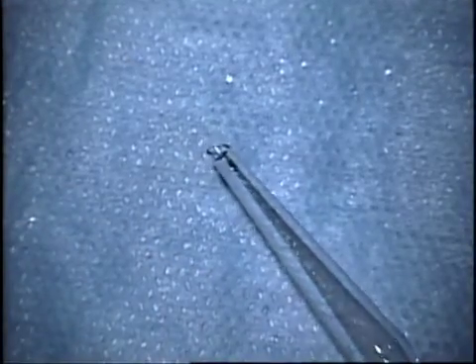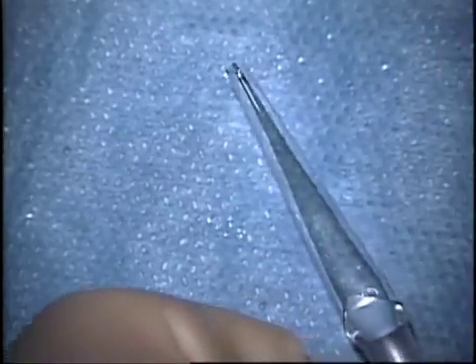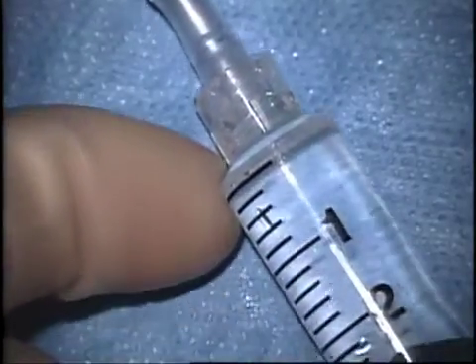If you want to see videos of the device in action, I have another video on the channel entitled DMEK injectors. Most of the other videos I show also feature this particular injection device, as it's what I've been using for approximately the last year.